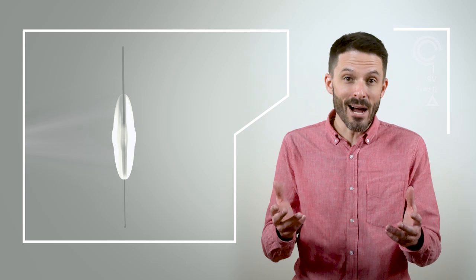Because the light adjustable lens is adjusted by light after surgery, it means no guessing for the surgeon. And because the lens can be adjusted multiple times in the eye, patients can actually try out different levels of vision to see what works best for them.